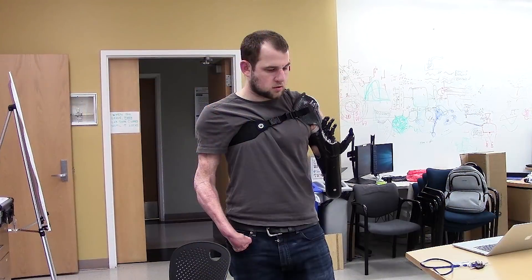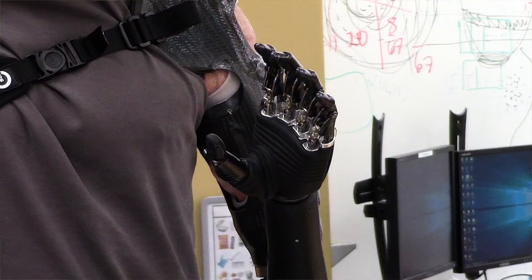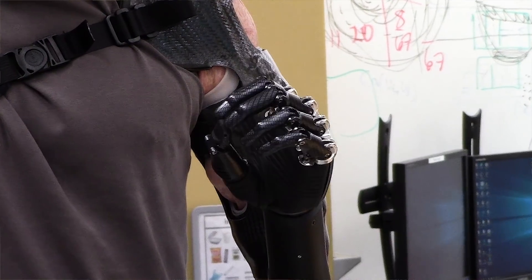Upper limb prosthesis users generally want to see improvements in control as well as comfort, but there's also a component of sensory feedback that users are interested in.